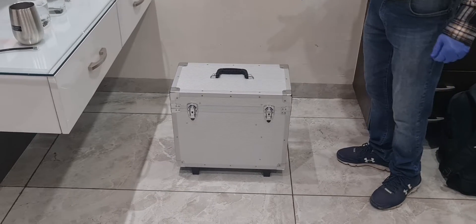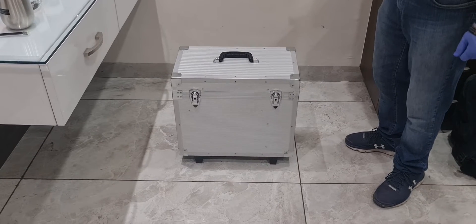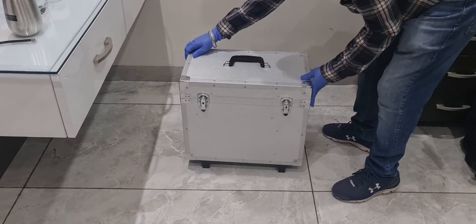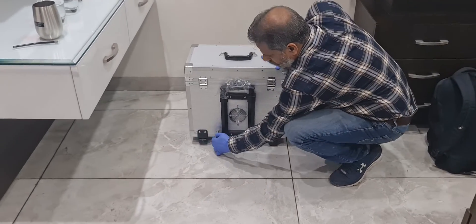Hi friends, here is another model of portable dental unit. This is the advanced one with the inbuilt scaler and the light cure. At the back you can see there is a trolley, and this is a suction controller.